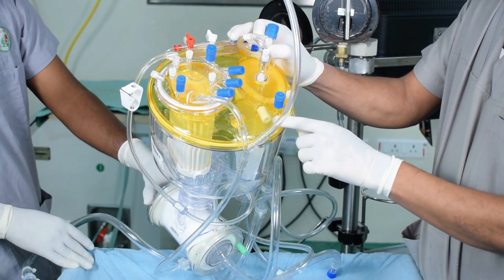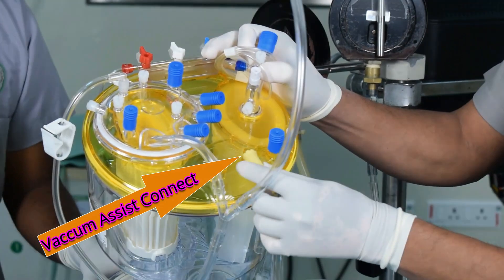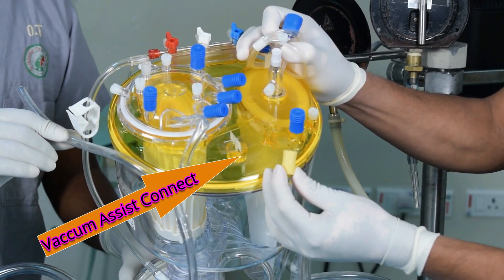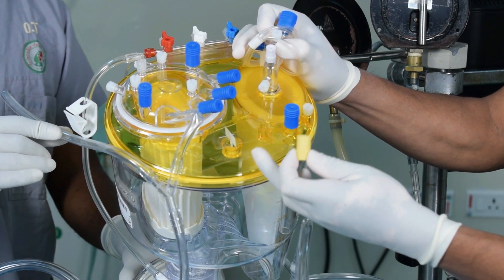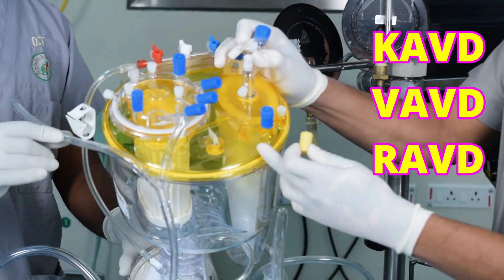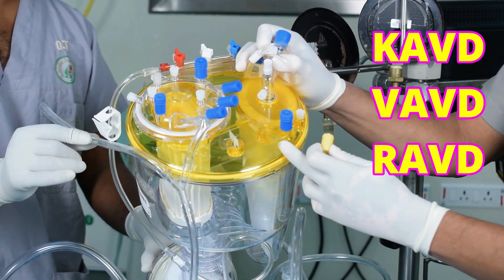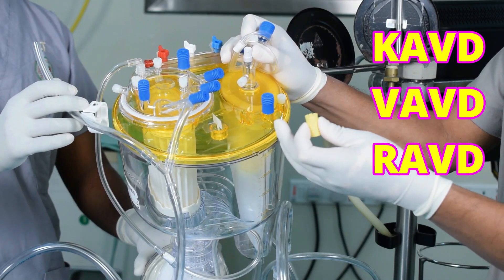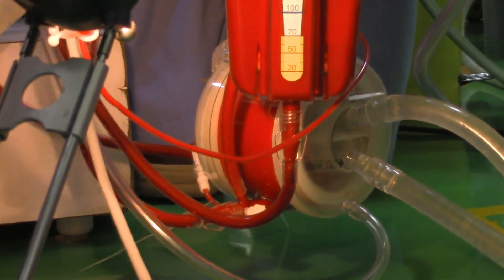Vacuum assisted venous drainage (VAVD) is the utilization of a vacuum system to generate negative pressure within the hard shell venous reservoir, thereby augmenting venous drainage during cardiopulmonary bypass. VAVD requires a closed venous system with a negative pressure region — usually a sealed hard shell reservoir with an integrated oxygenator — and a vacuum regulator to adjust the negative pressure. The vacuum regulator should be limited to a certain range and must have negative and positive pressure relief valves. When a hard shell reservoir is utilized for vacuum assist, all connections at the top of the reservoir should be closed. The venous reservoir level should always be monitored when on VAVD, and pump flow rate adjusted accordingly to maintain adequate perfusion.